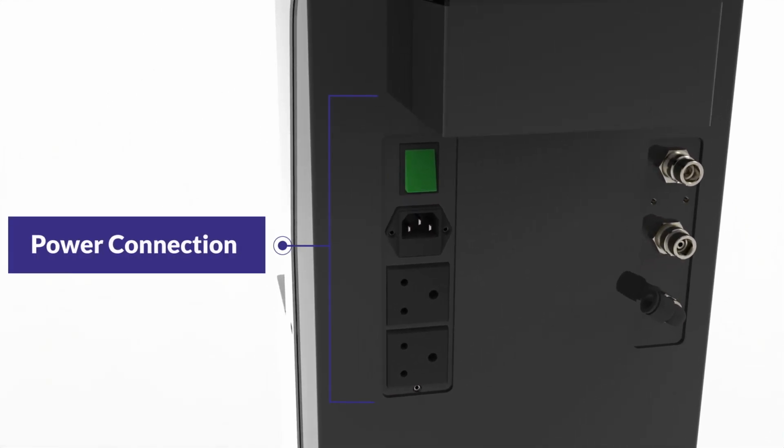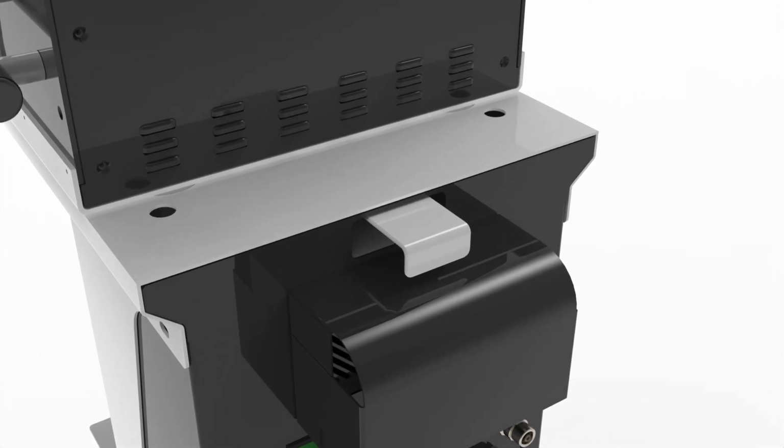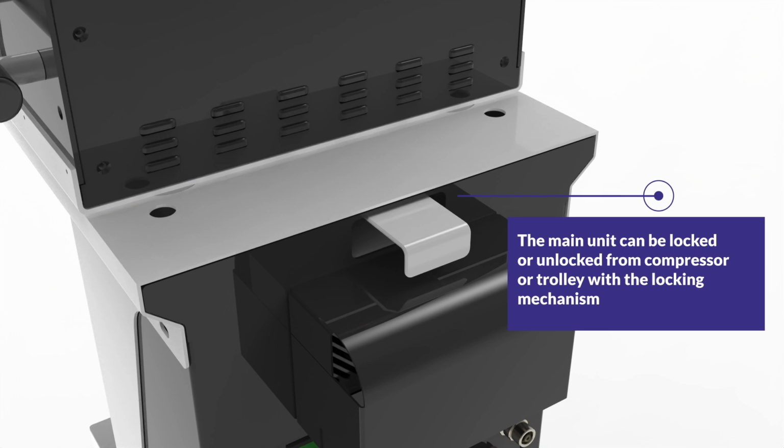On the left side are the power connections and the compressor on-off switch. The humidifier could be connected via the additional ports available here. The ventilator can be easily unmounted by pulling the lock as shown.